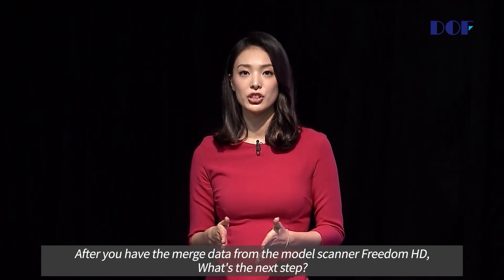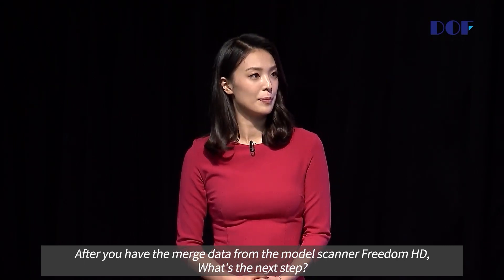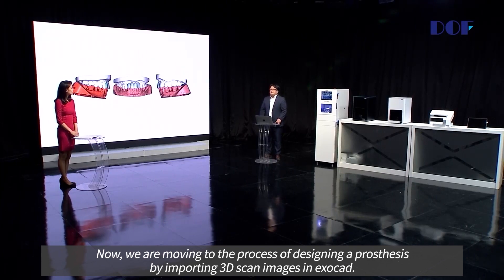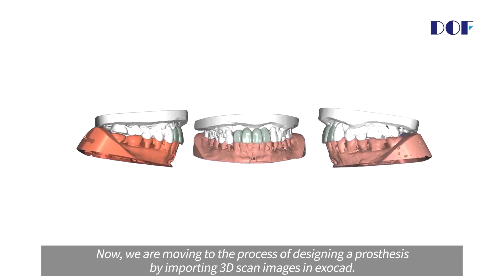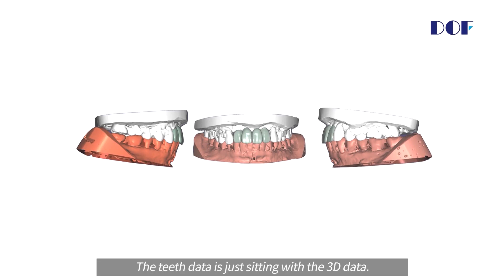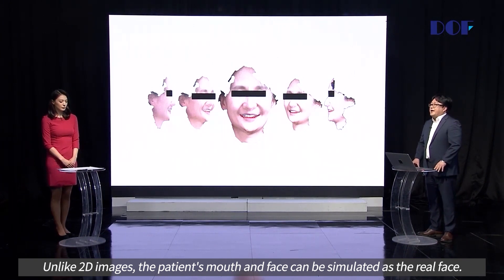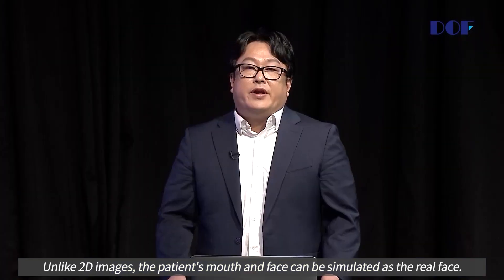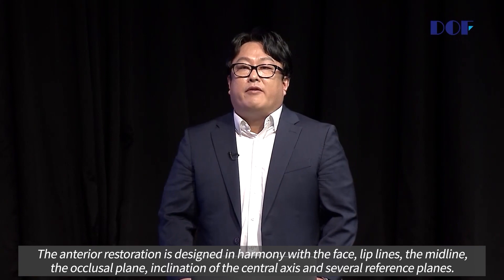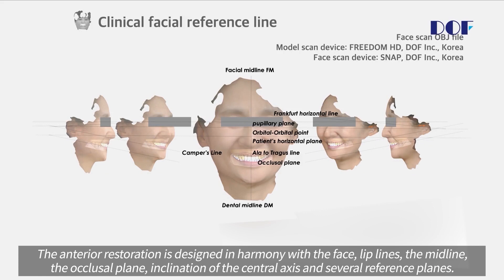After you have the merged data from the model scanner Freedom HD, what's the next step? Now we are moving to the process of designing the prosthesis by importing 3D images in ExoCAD. Unlike 2D images, the patient's mouth and face can be simulated as the real face. The anterior restoration design is made in harmony with the face, the midline, the occlusion plane, inclination of the central axis, and several reference planes.